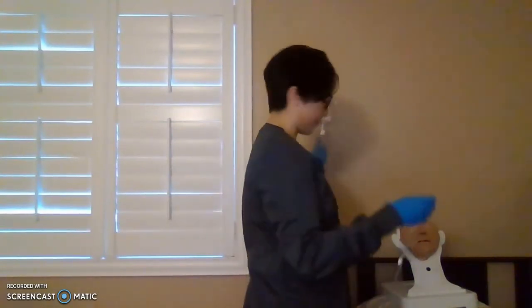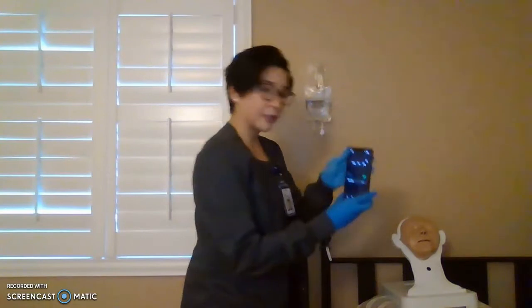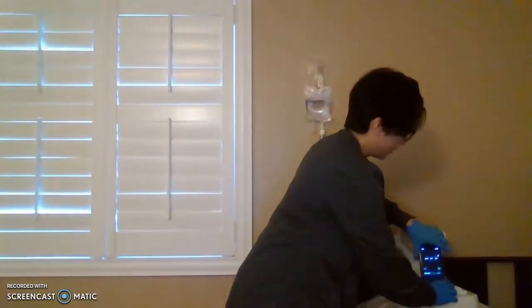Okay, we are still off, right? Just want to remind you. So now, we are going to count the drips for 1 full minute. Usually you have a watch, you time it for 1 full minute. Okay, for the video, I'll be using this timer.